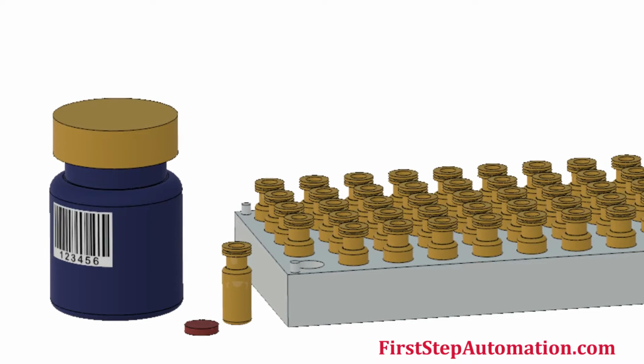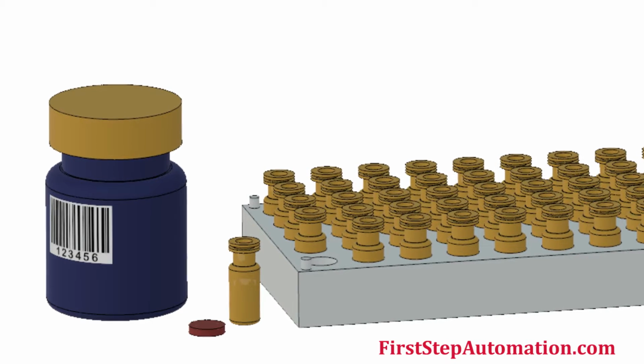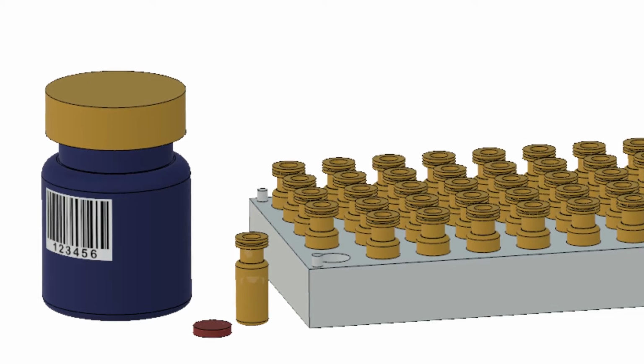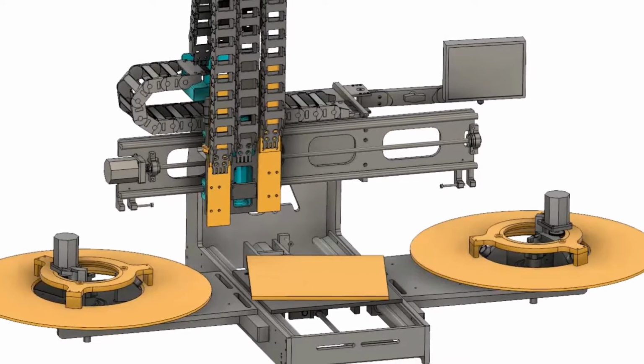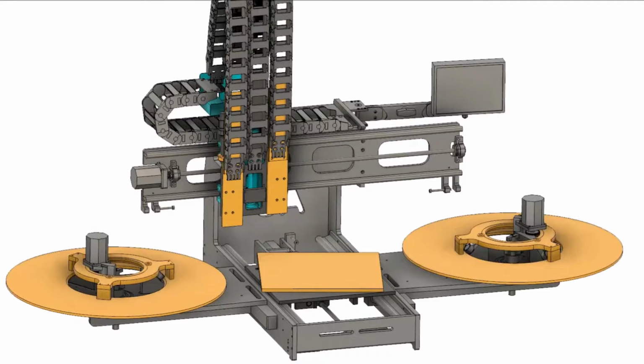The bottom of each vial contains an embedded passive radiofrequency identification chip, while the specimen bottles are labeled with barcodes. The process involves partially filling each vial with reagent fluid, then placing drops of urine from each of the specimen bottles into a separate pair of vials.